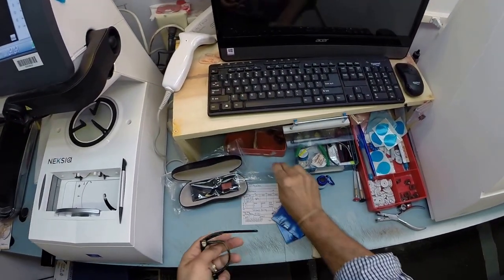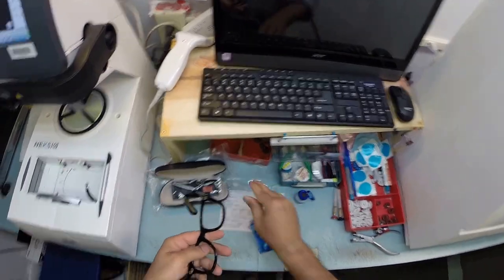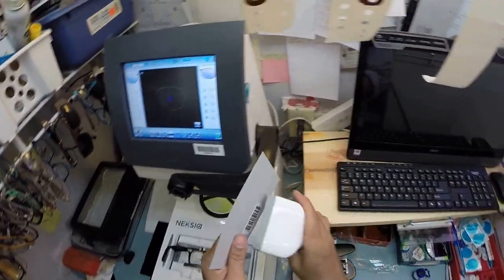So let me pop out your original demo lenses and begin. Actually, I need to put a little sticker on the back to let me know which number this one is. Let's scan this.